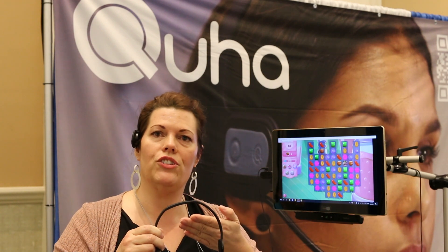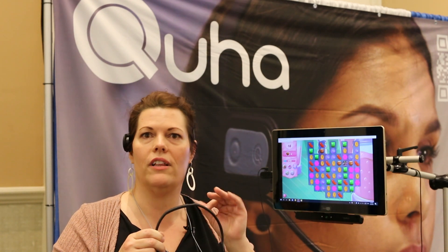The great thing about the contactless puff switch is that it doesn't go in your mouth. You can adjust it so that you can talk and also position it just right so that you can blow down just a little bit, keeping it ready all the time. A lot of people find this more hygienic and more useful.